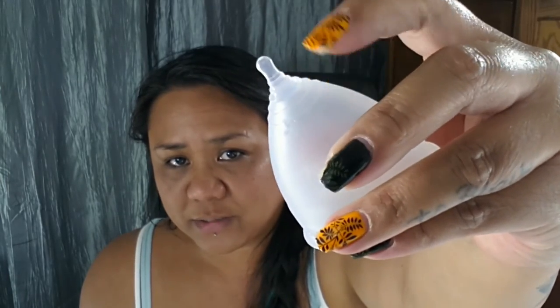There are three grip rings on the base of the cup. They're not raised too high, but not so low that you don't get a good grip on it. I'll run my nail over it — it's kind of a muted sound, which usually says the rings are not as high as some other cups. The seal between the stem and the bowl of the cup is right at the top grip ring. So you can trim the stem off all the way down to that grip ring if the stem is giving you problems or is still too long.